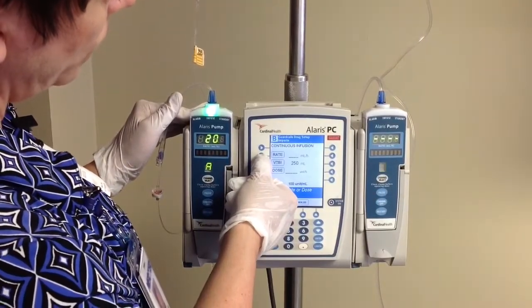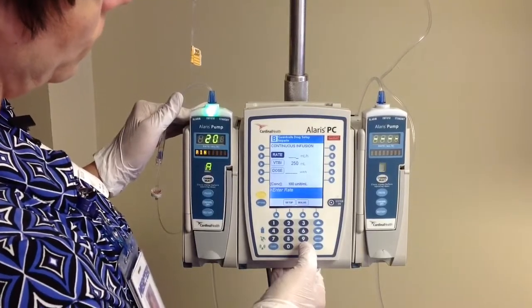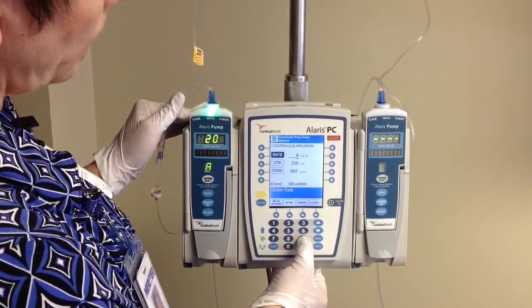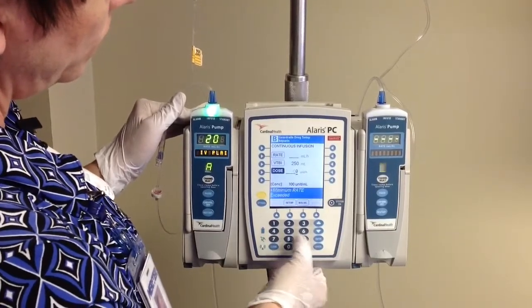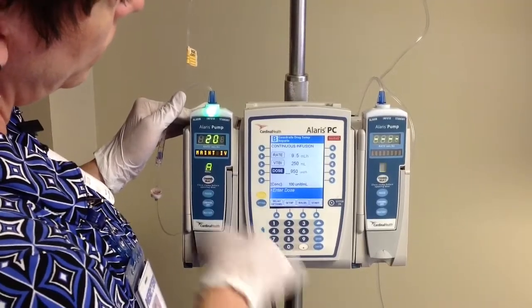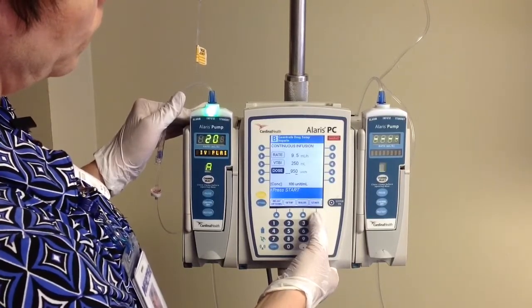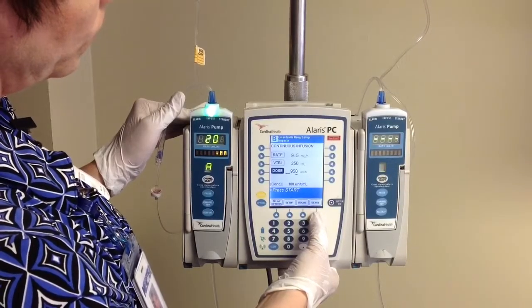Let's go ahead and hit reprogram and see what we had done wrong. When we dialed in there, we actually hit 950 mLs per hour — our order was 950 units. So if you hit the dose button for this programming and dial in your 950 units, you'll notice that your rate is then automatically calculated to be 9.5 mLs per hour. That's why our smart pump told us we made a mistake, because 950 mLs per hour is way too fast. Go ahead and hit start on your pump at this point.